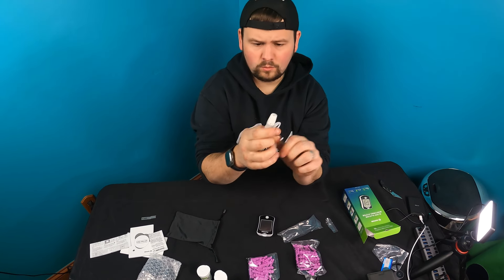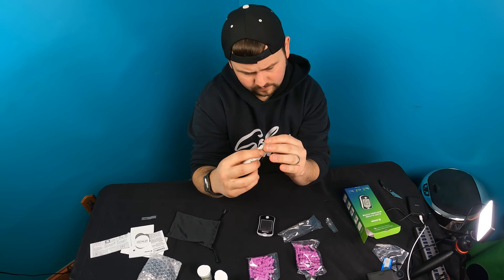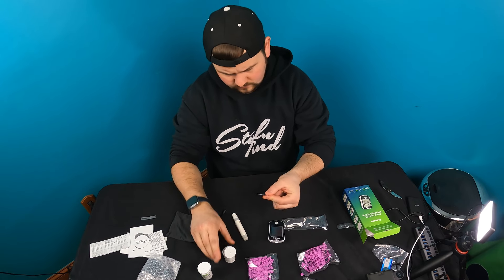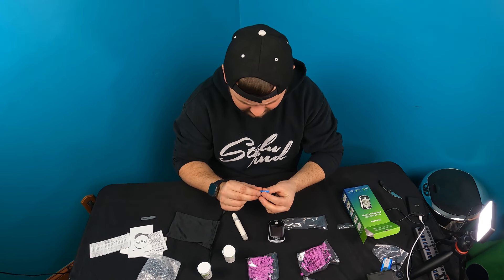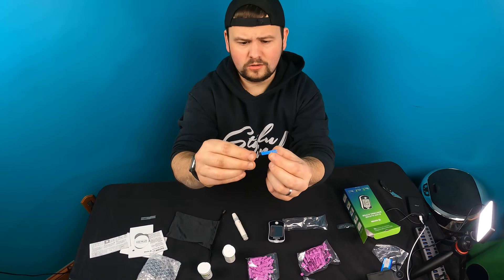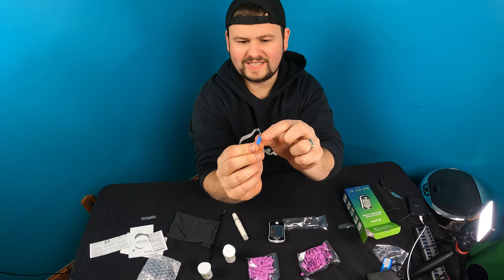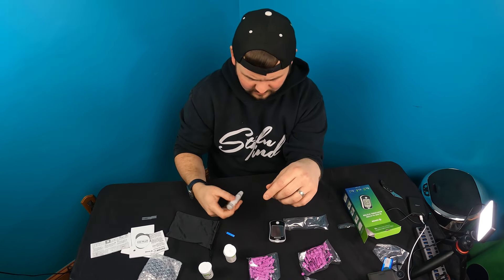Now you can test it out. Let's get our strip ready. It shows where to put the blood sample — it's on the tip, not the top. You have this little blue piece: don't put the blood on the top of it, put it on the tip. You let your blood touch just the tip like this.